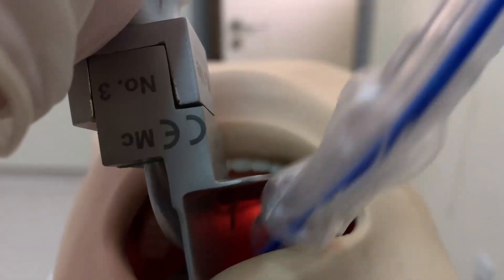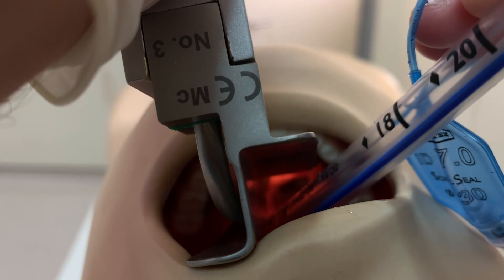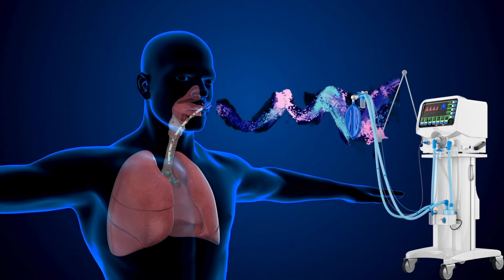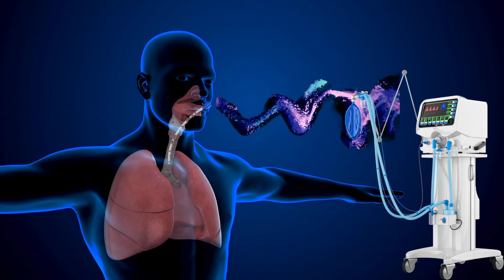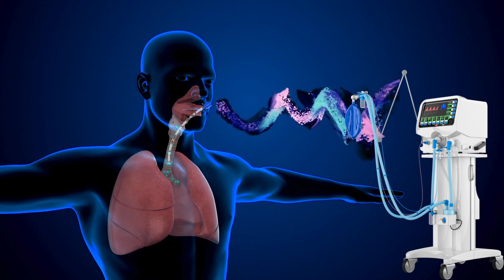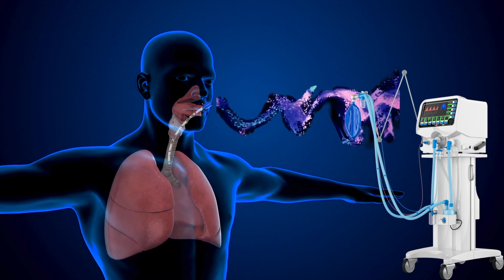The endotracheal tube is very beneficial for patients who cannot breathe on their own — they can breathe via the mechanical ventilator. However, when inserting this endotracheal tube, even though it is beneficial for the patient, it is associated with complications like infection and other difficulties.